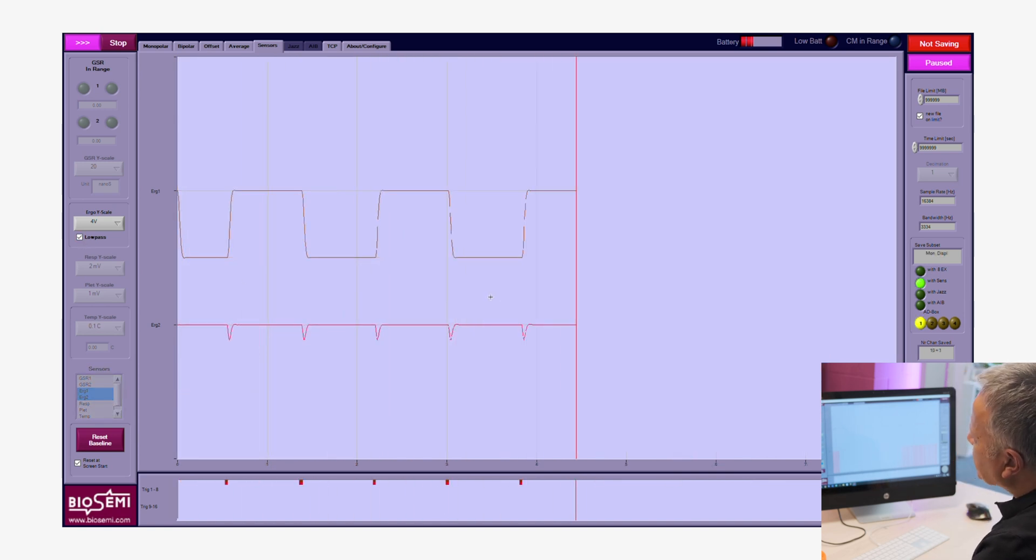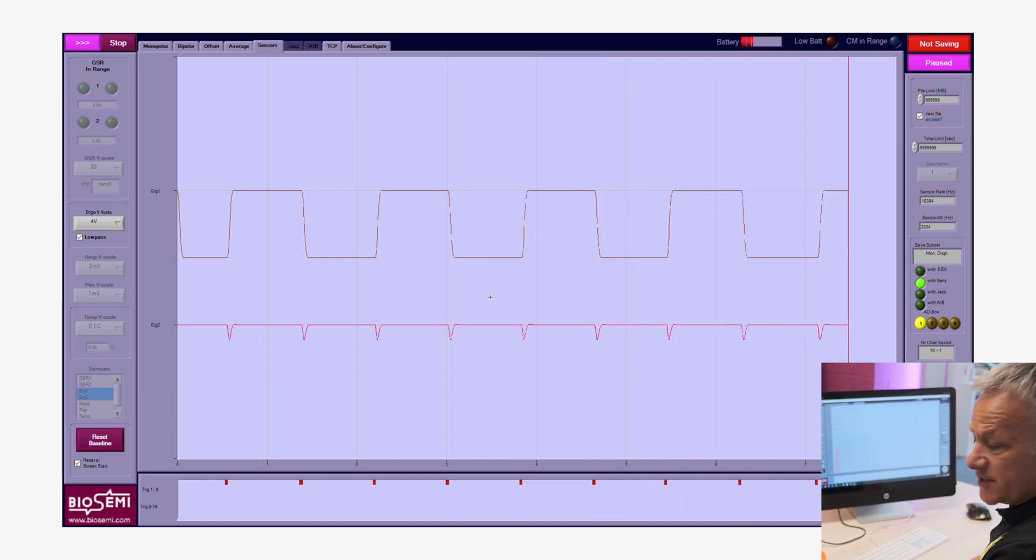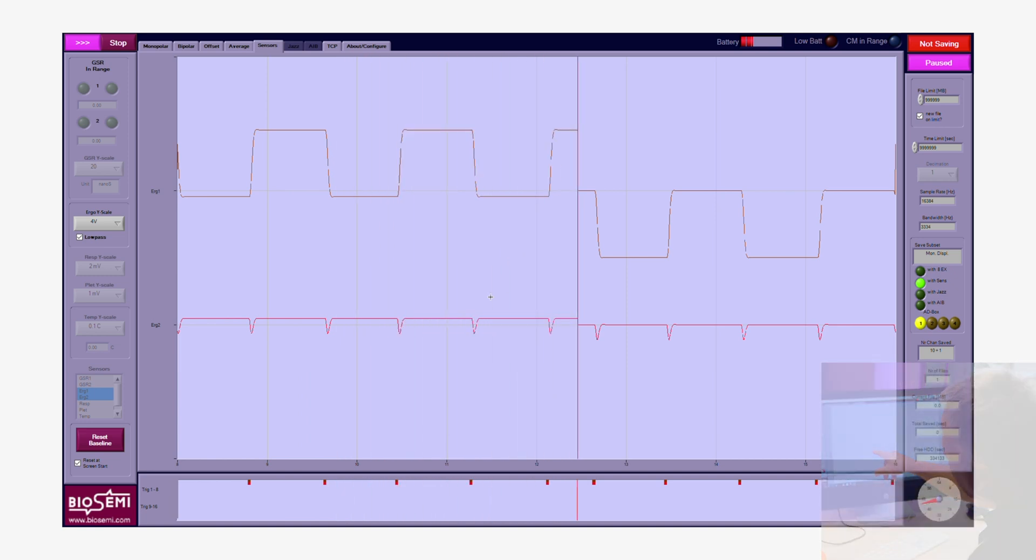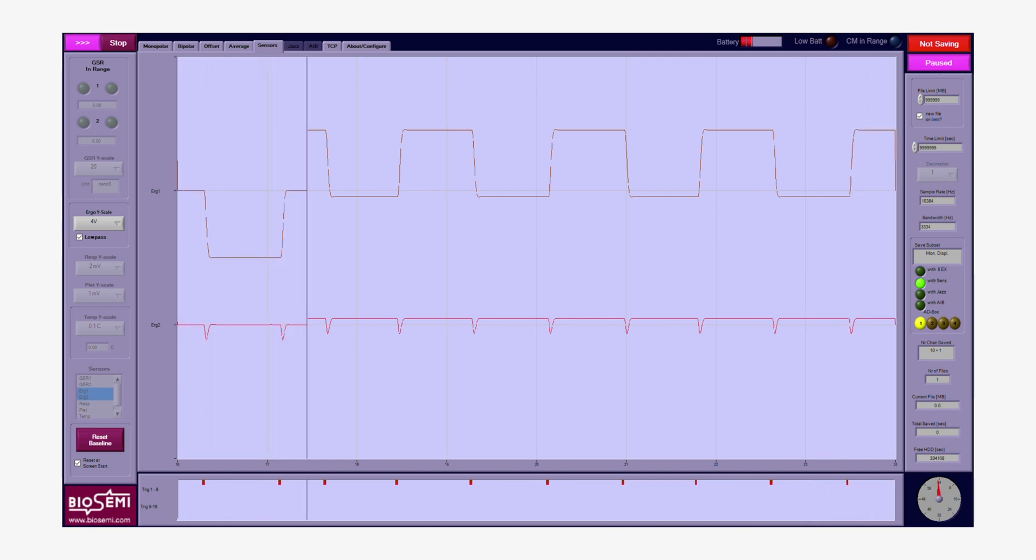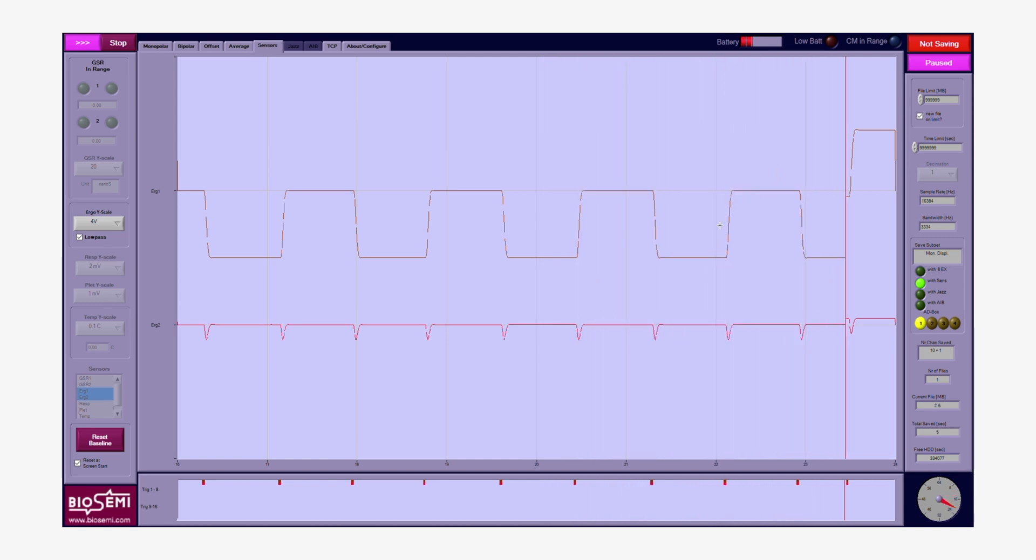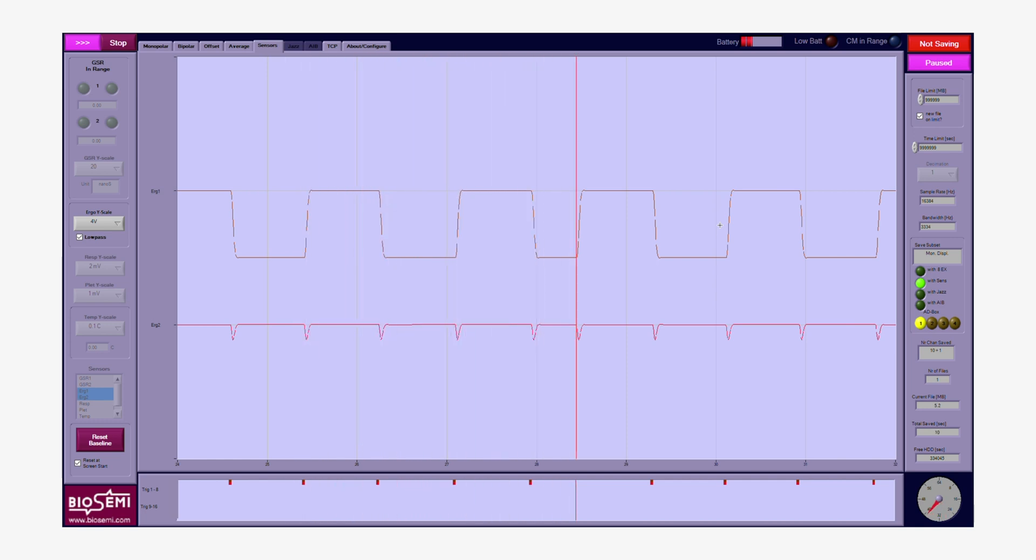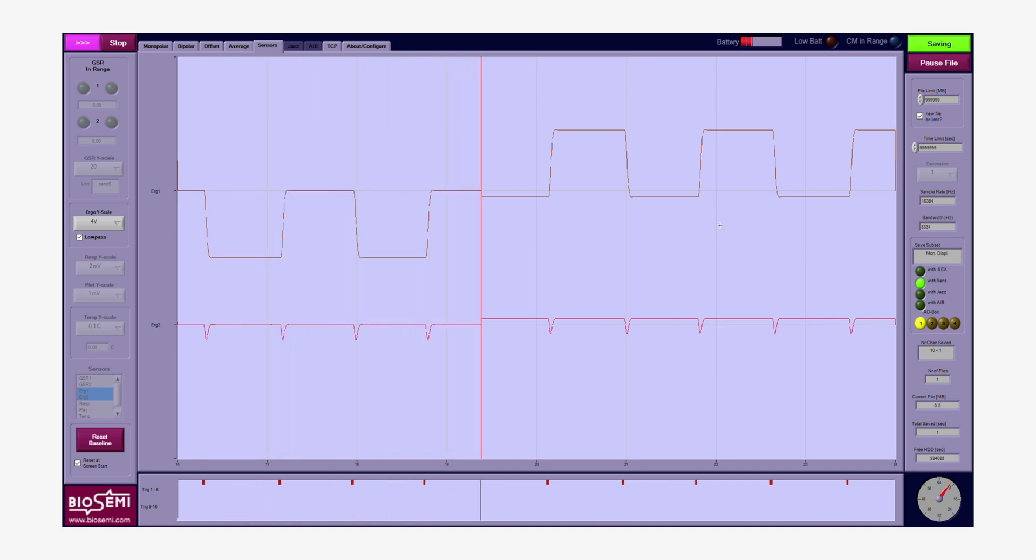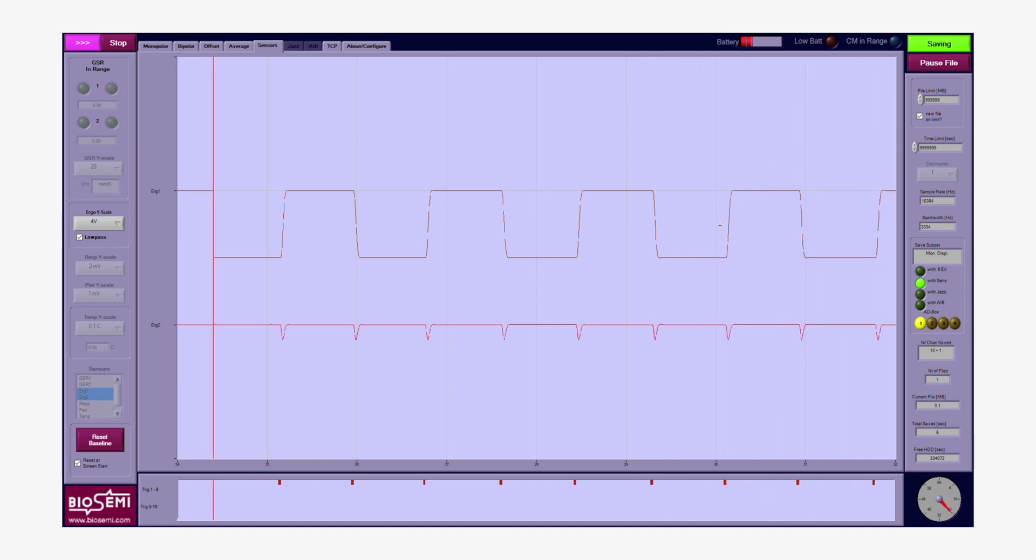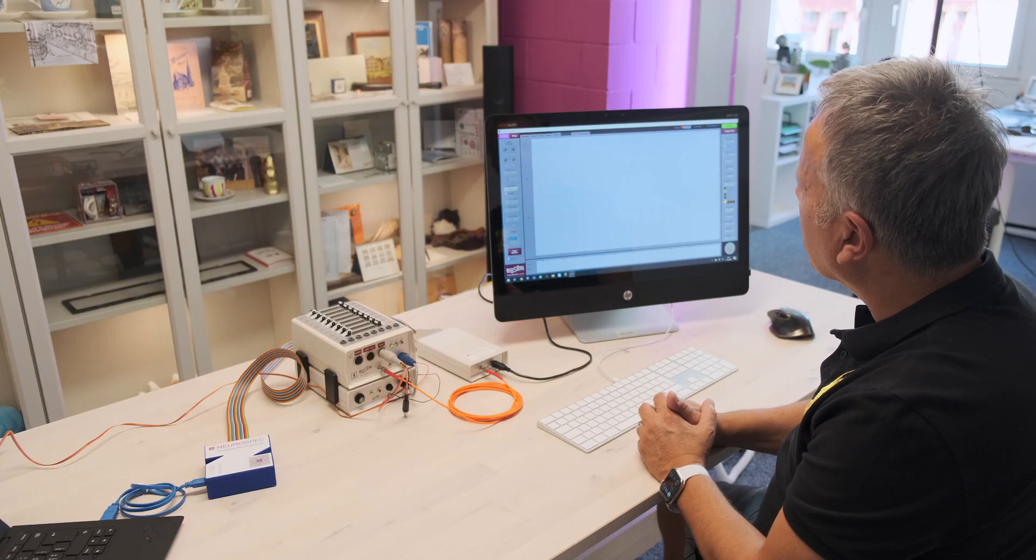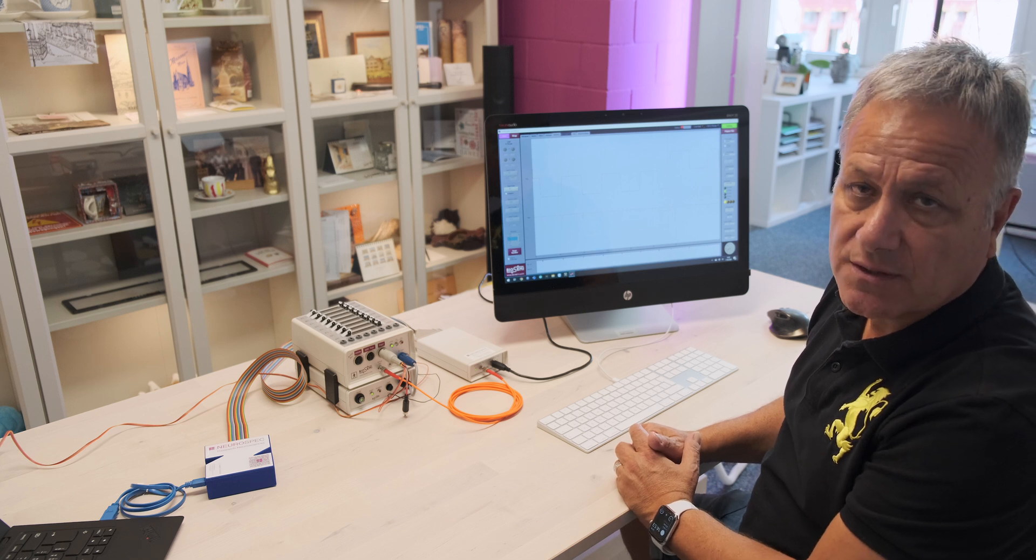Immediately we will see a couple of things. We'll see the photo response which is a rectangular response that comes through. We see here some sharp teeth which is the trigger we're feeding back into ERG, and at the same time we're also seeing the triggers being presented on the bottom of the screen inside our trigger window. Now we're saving the file. We need to hit the pause button and at this point in time we're actually saving the data. We can see it also down here—we're collecting megabytes and we're saving 10 channels plus one channel which is our trigger channel.